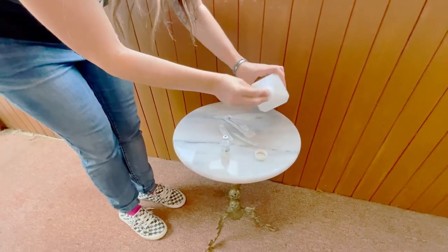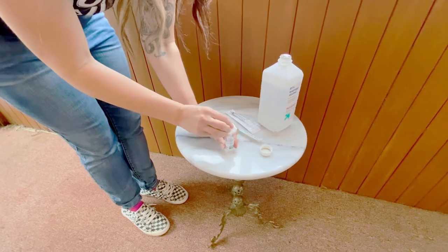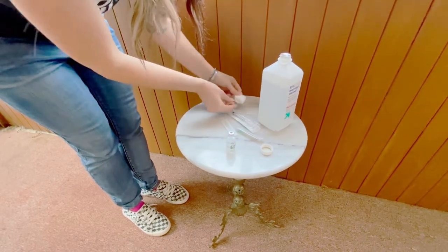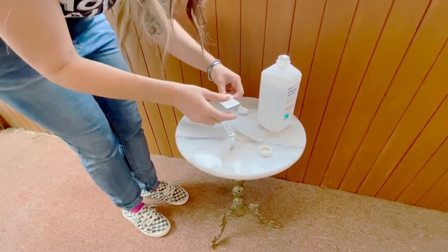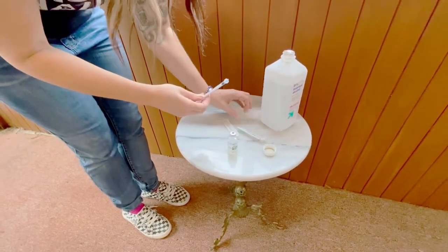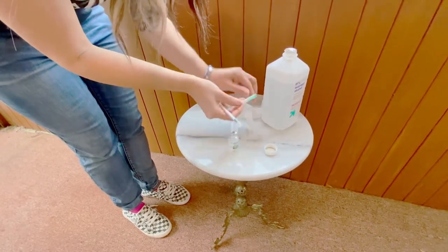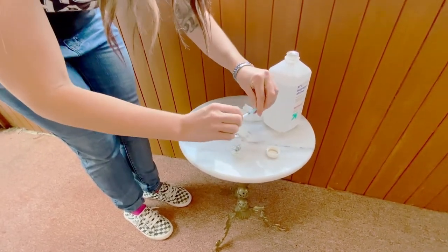Apply a small amount of alcohol to your cotton swab and then gently wipe off the top of the vial. Allow that to dry, and while that's drying, grab your 1 milliliter syringe and your bigger needle and then twist it on the Luerlock.